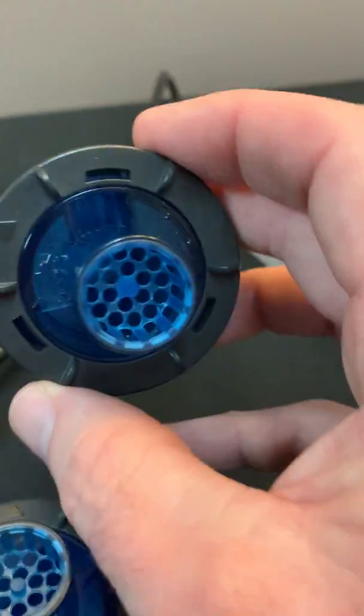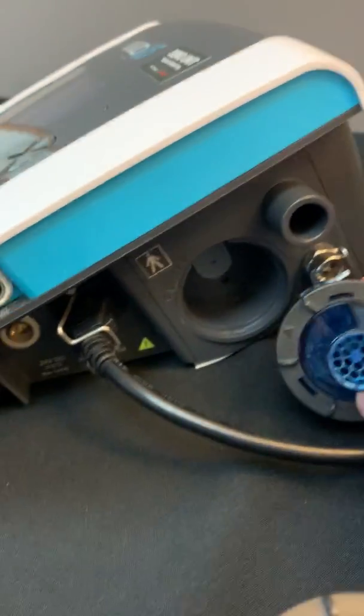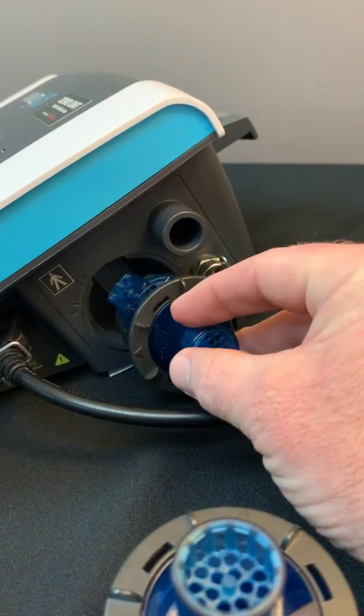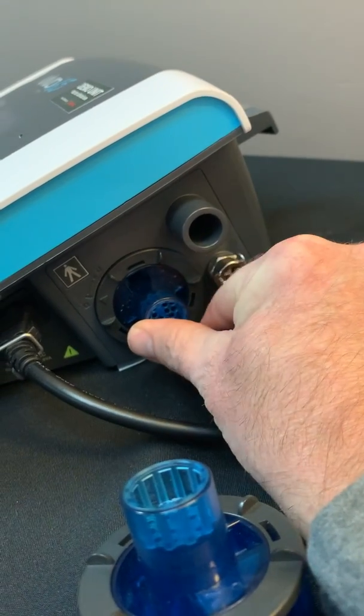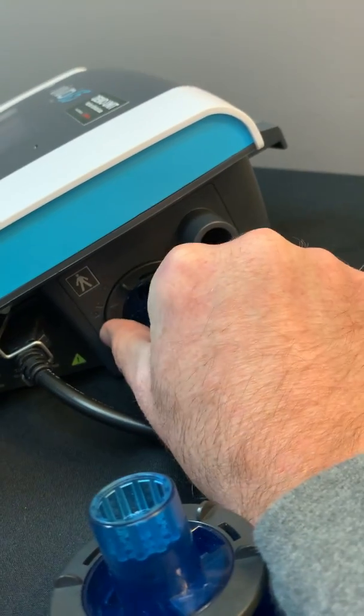So the inserts or the way you place the insert into the device is simply, they only go in one way and they just simply slide in to the device.